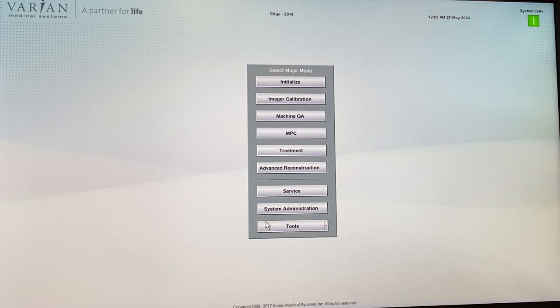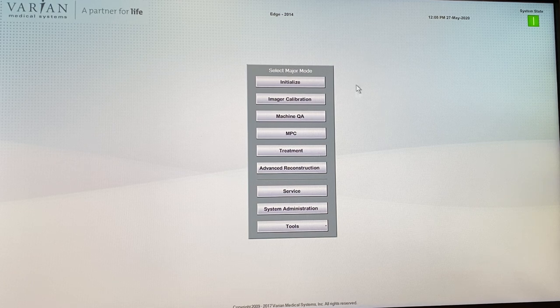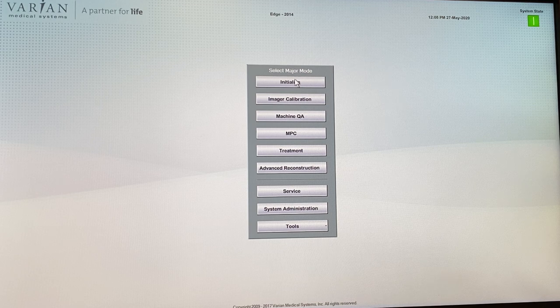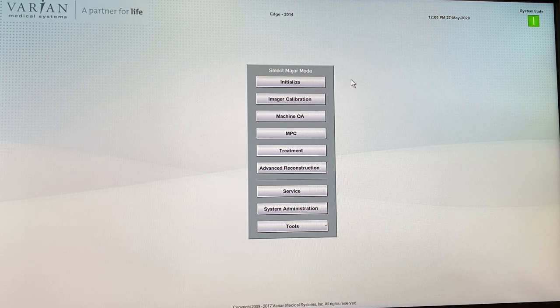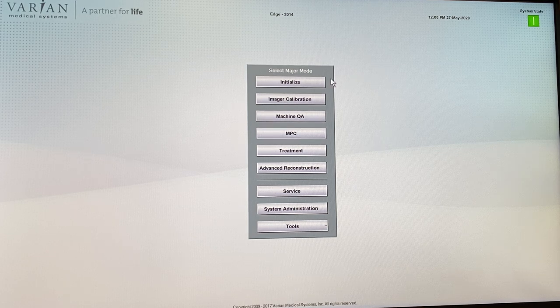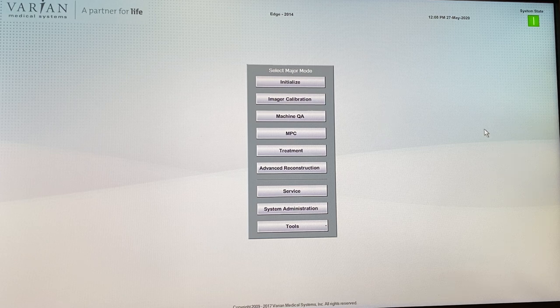In this video I'm going to talk about the different modes of the machine and then talk a little bit about service mode, giving an introduction to the things we typically do in service mode. Let's start off with the home screen, which is called the major mode screen.